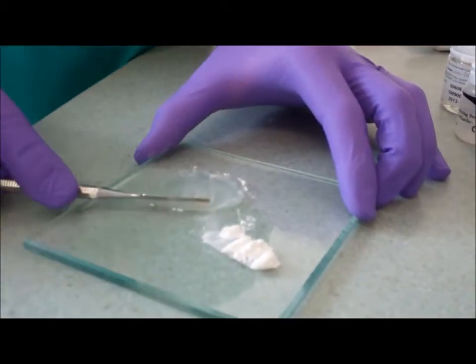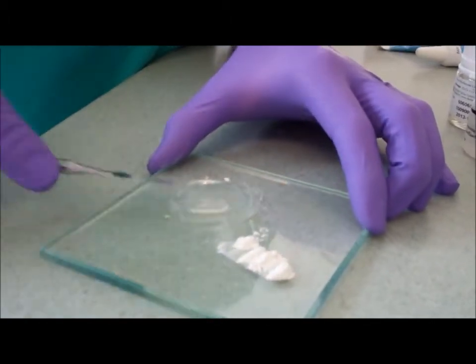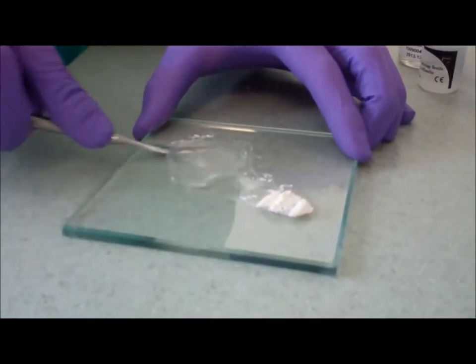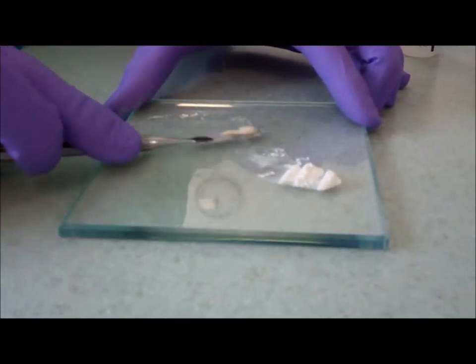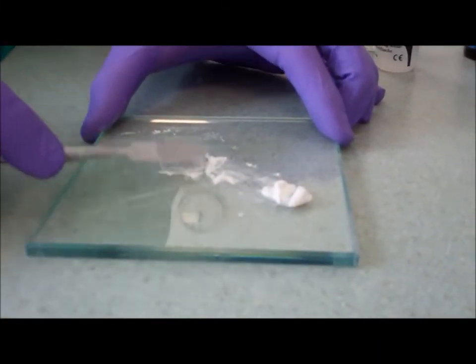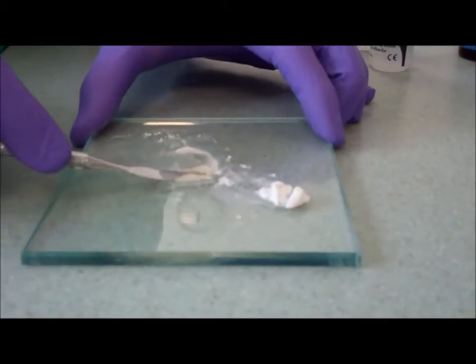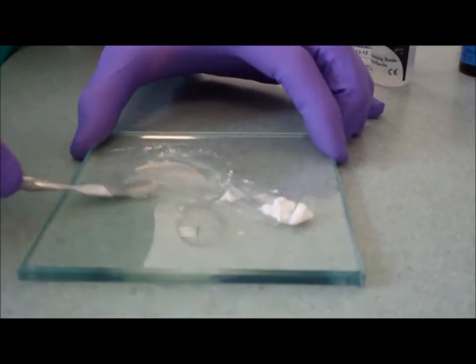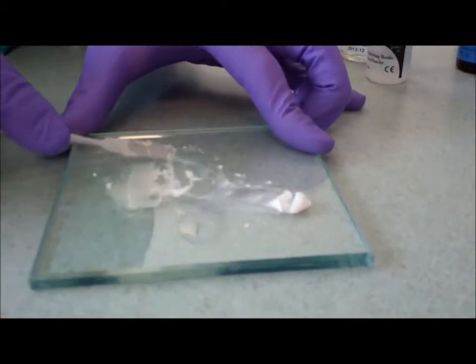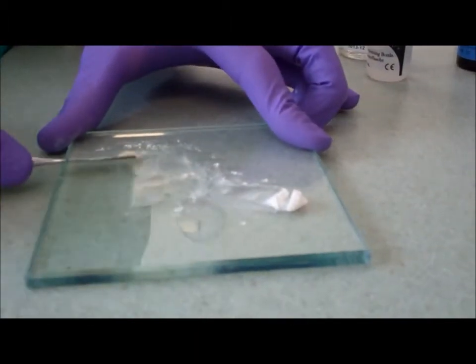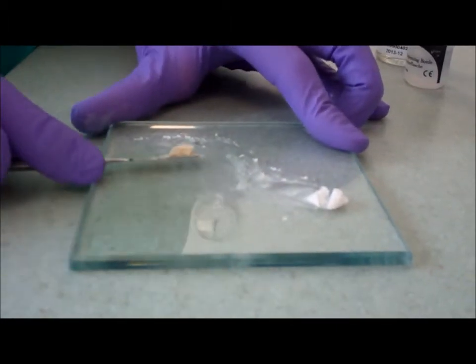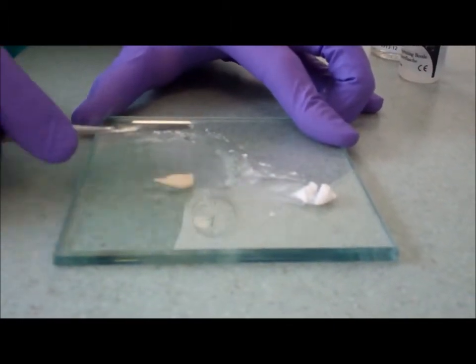You're going to need more powder than you would for a lining material, as you're looking for a much stiffer consistency for a dressing. When mixing for a dressing, you need to be quite quick with your timings, and the material will set if you take too long to mix it. Don't pick it up in your fingers, roll it on the spatula.